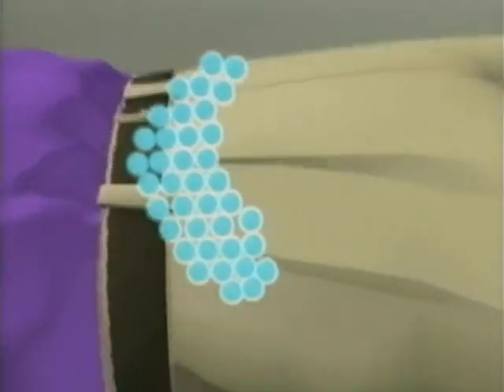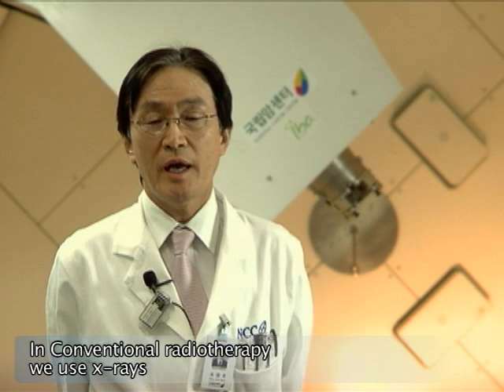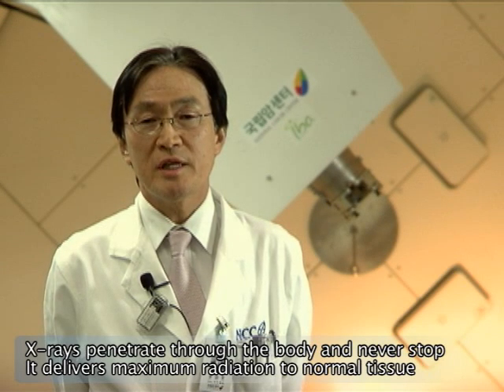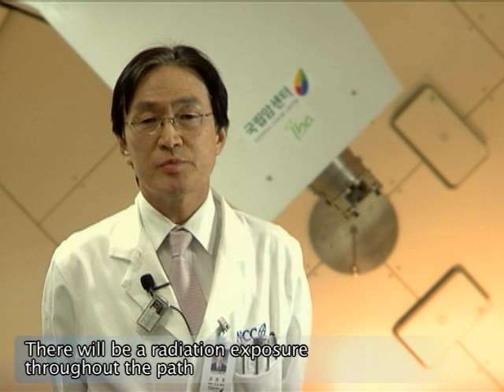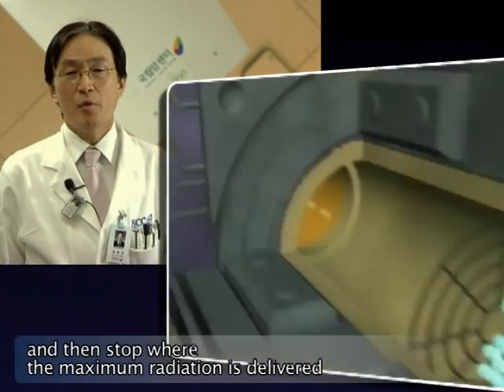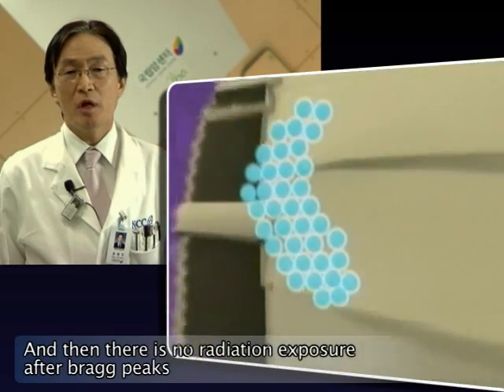In conventional radiotherapy, X-rays penetrate through the body and never stop, delivering maximum radiation to normal tissue with radiation exposure throughout the entire path. However, proton beams travel through the body and then stop where the maximum radiation will be delivered — we call it the Bragg peak — and there is no radiation exposure after the Bragg peak.